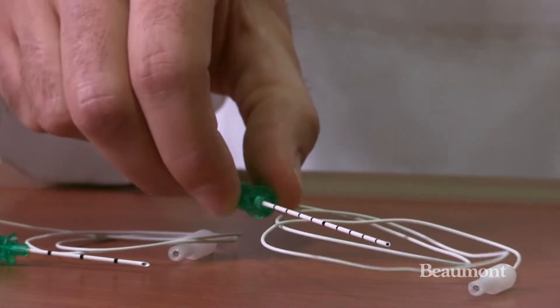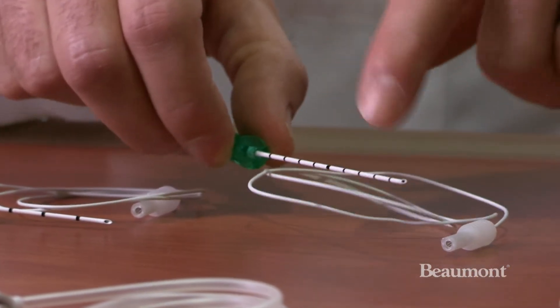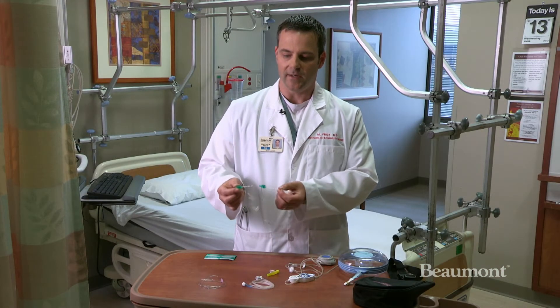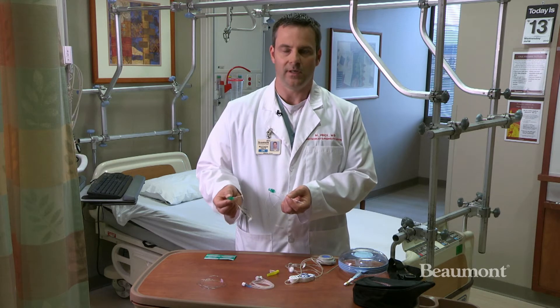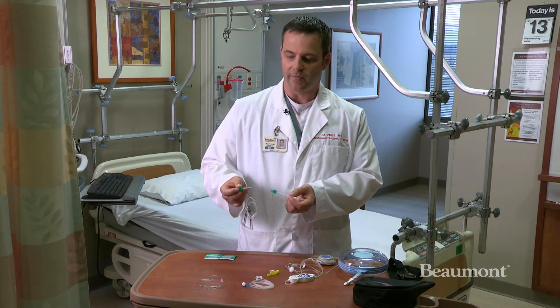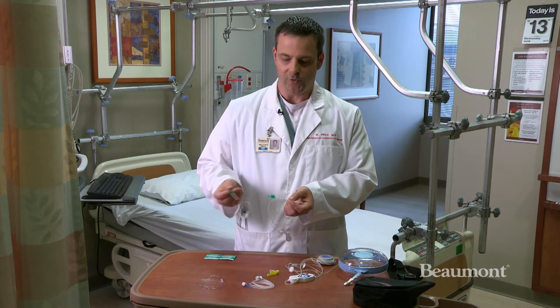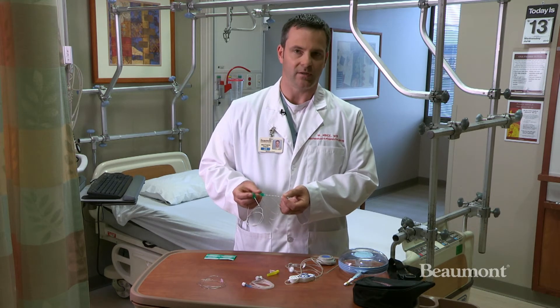Here we have one of the needles that we would use to place the catheter. We'll use the ultrasound machine, identify where the different nerves are, and then select the needle size based on the patient and the area of the body. If we're working on a shoulder, oftentimes we'll use the shorter needle. If we're doing ankle surgery, we might use the longer needle for that particular block.